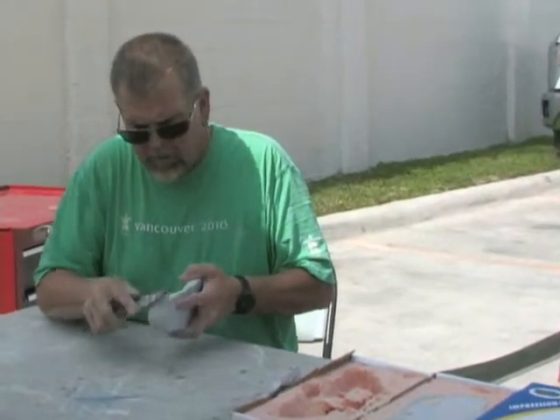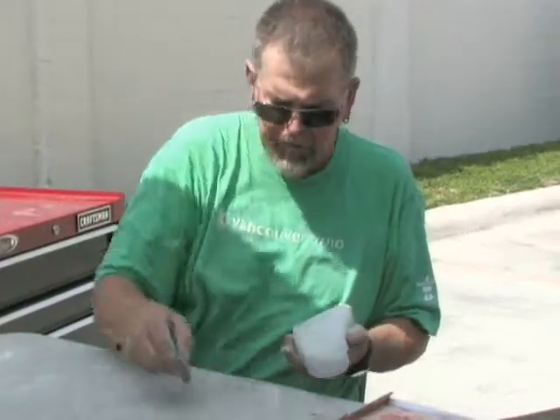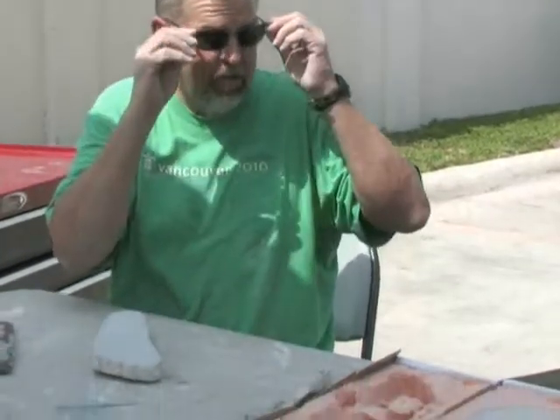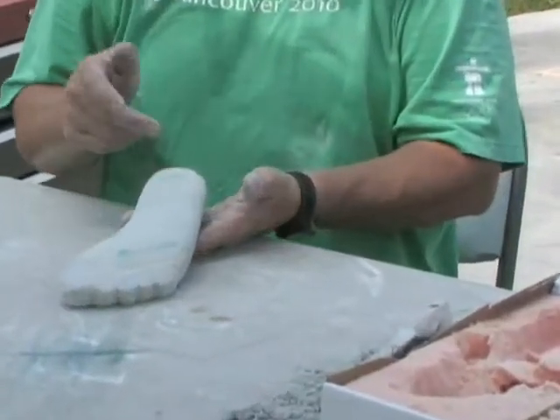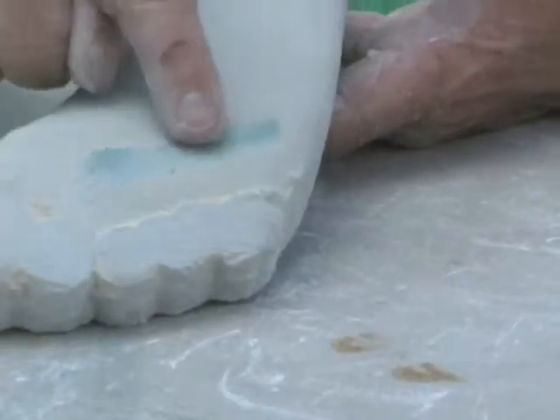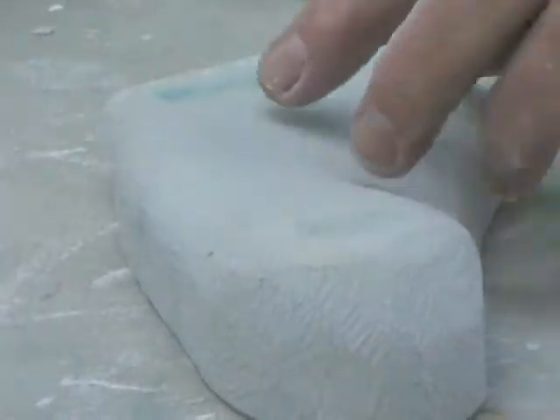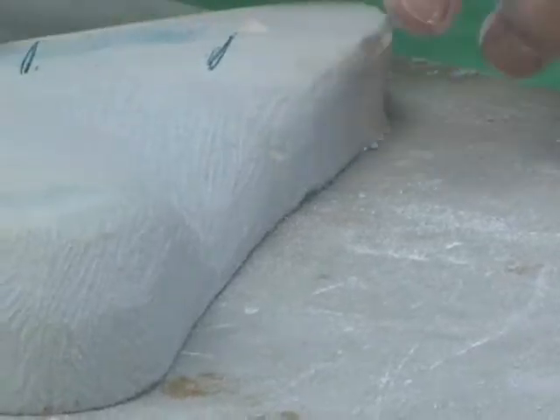Now I have to establish your first and fifth. We've already checked it once but I've moved a few things around, so I'm going to check and make sure everything is good. I run it back across my mark and I'm still getting calcaneus and fifth — that's okay. But right in through here I need to change that, so I'm going to take the half-round file.